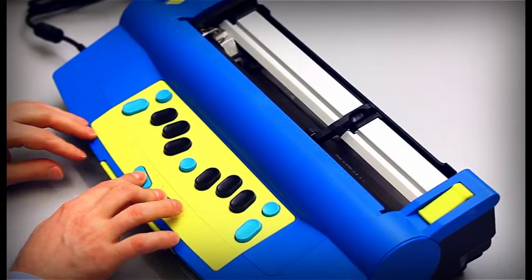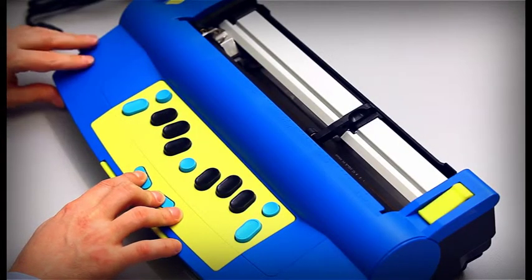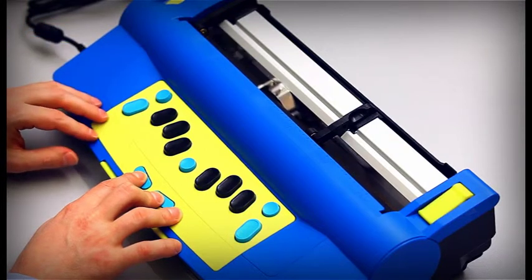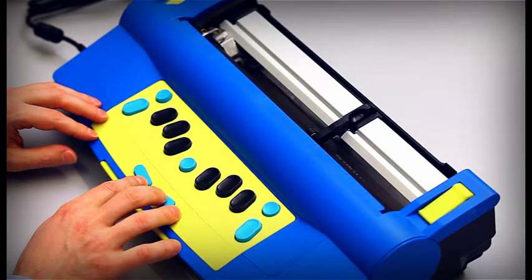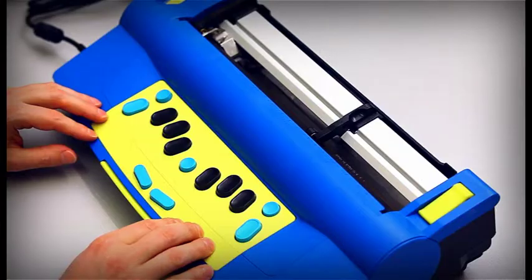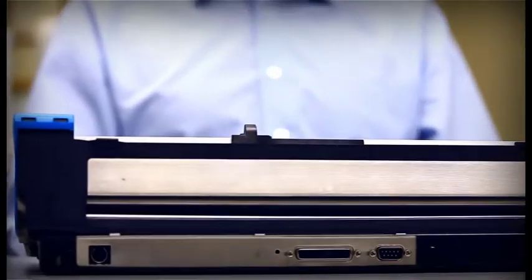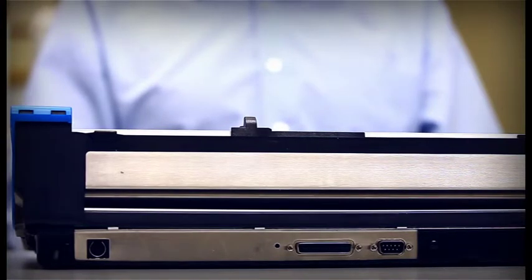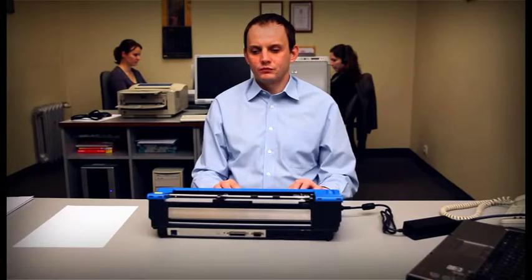When you turn it on, push and hold the new line and space keys until the head begins to move. This switches the paper sensor off and the Mountbatten will not call for paper. This mode is also useful when you want to emboss on small paper formats.